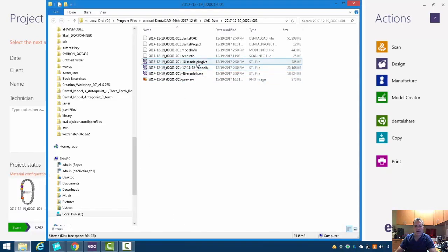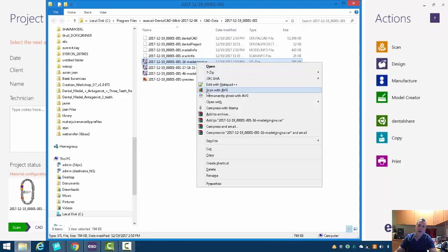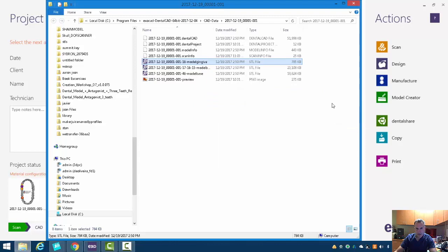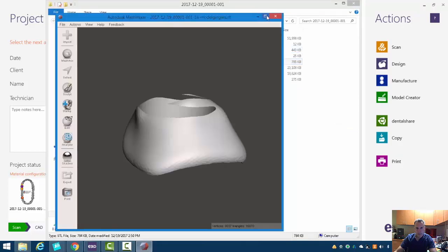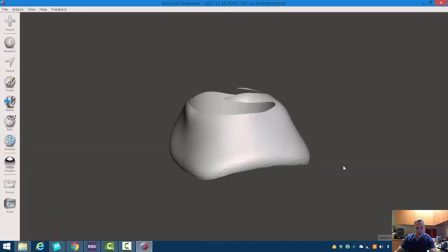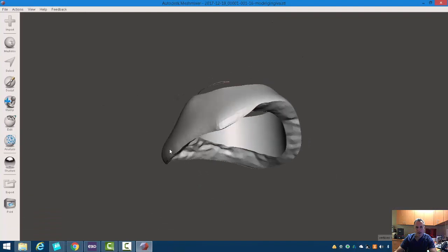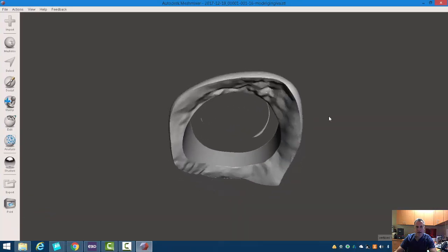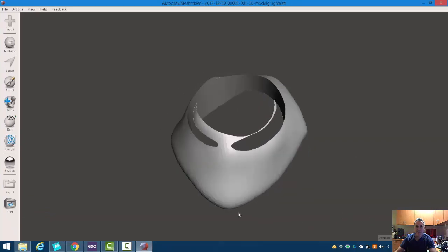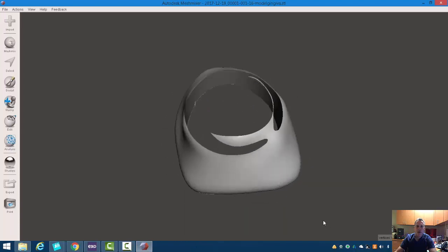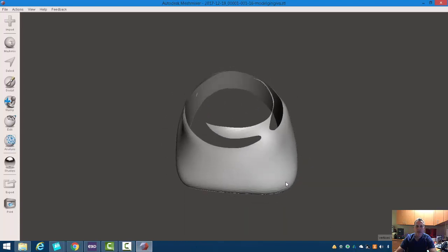Let's go ahead and open up a few of these in MeshMixer and I can show you what these look like. If we open with MeshMixer, you can see here that we've got kind of an odd setup here, and I don't know if that is even printable. What we can do is if you don't want this, you can double click it.